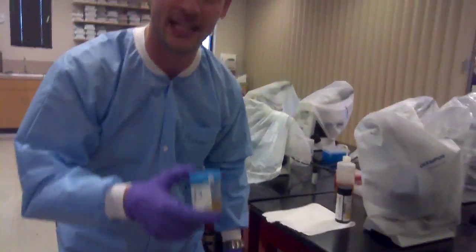Now that we have performed the test, we need to discard our urine and our dipstick. The dipstick goes into the biohazard trash with the orange lining.